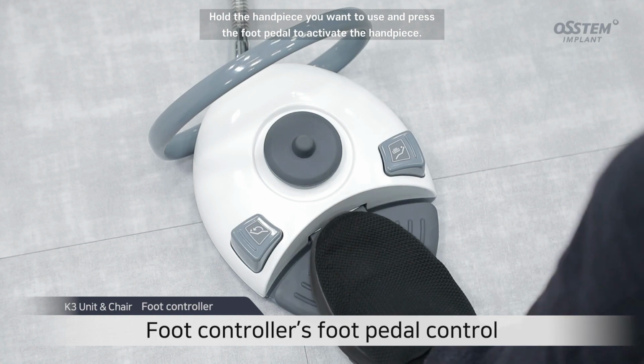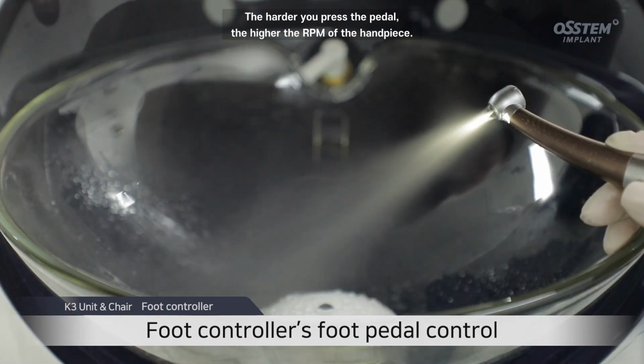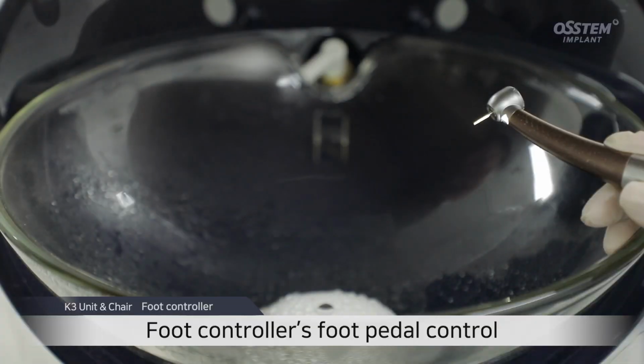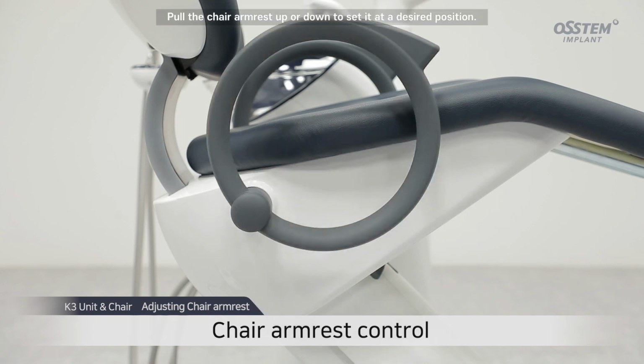Hold the handpiece you want to use and press the foot pedal to activate the handpiece. The harder you press the pedal, the higher the RPM of the handpiece. Adjusting chair armrest. Pull the chair armrest up or down to set it at a desired position.